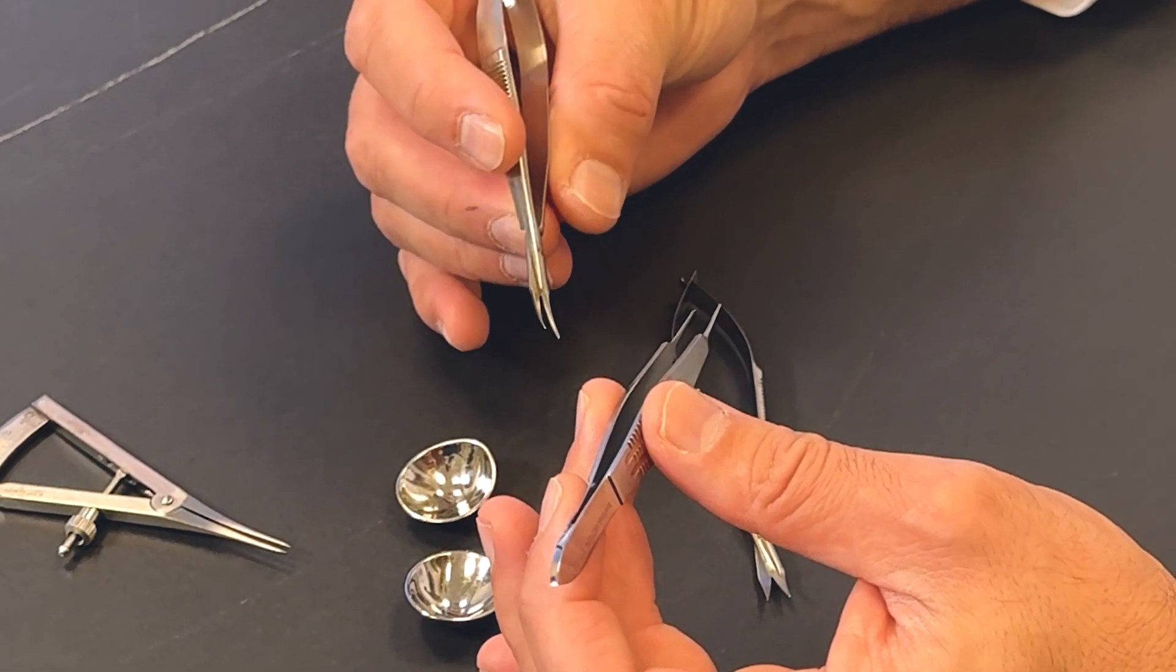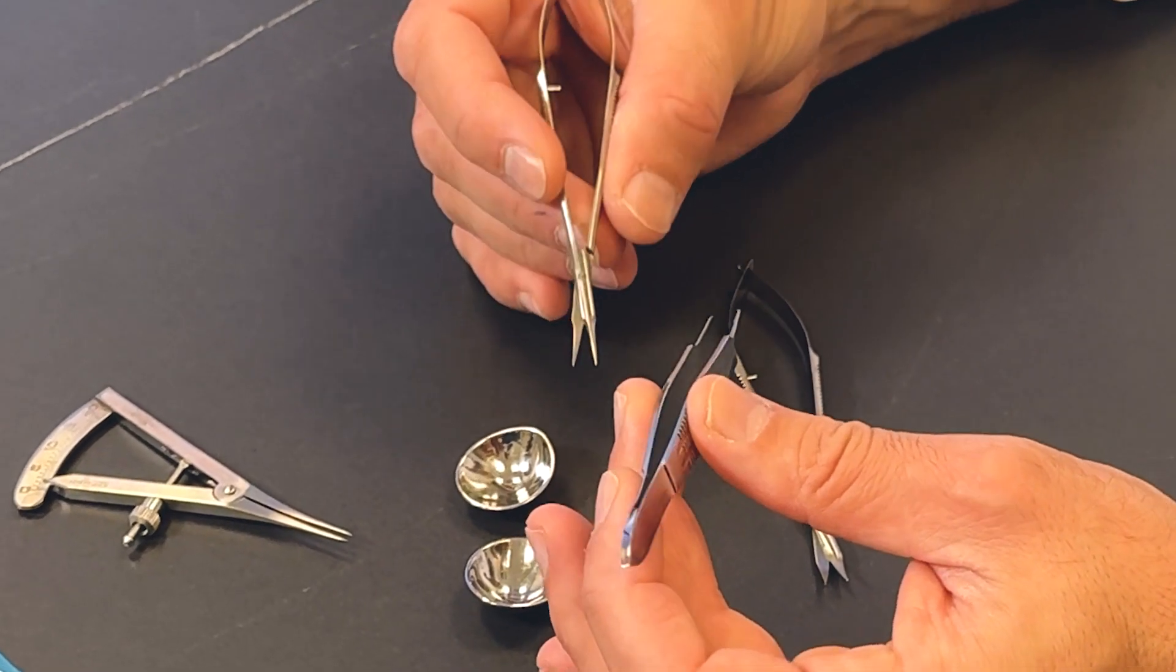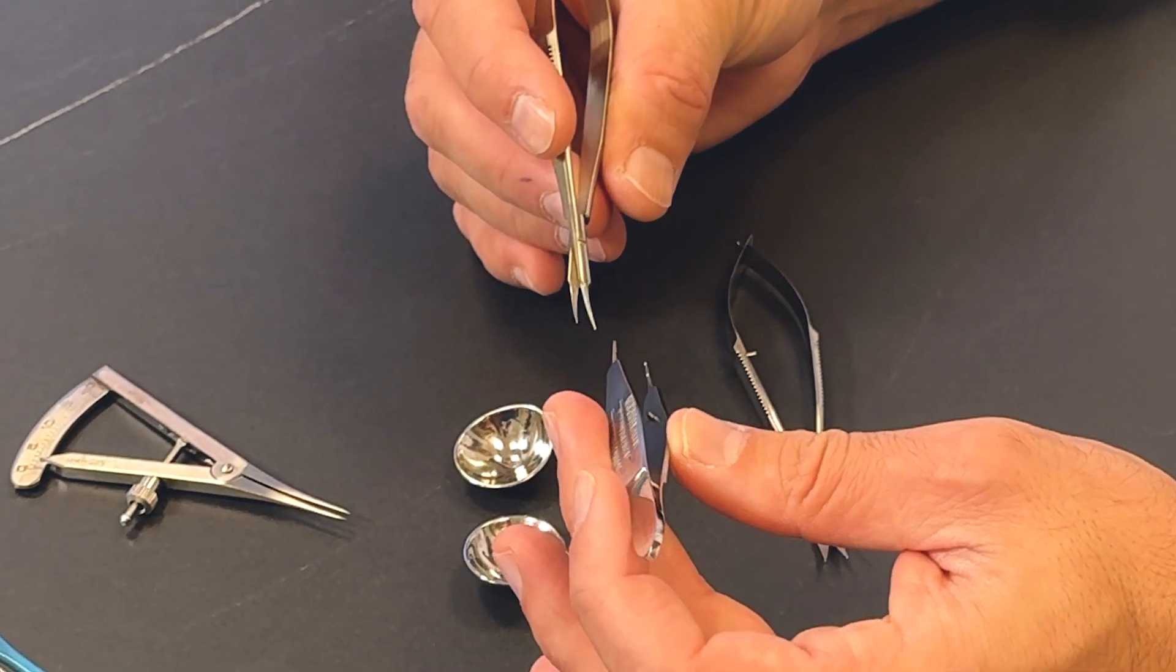Using these instruments in the right ergonomic fashion, keeping your body posture correct, and allowing for your hands to rest on the patient's face allows you to really do it in a way that you're not having any tremors, but you're completely in that state of fluidity and being stable.